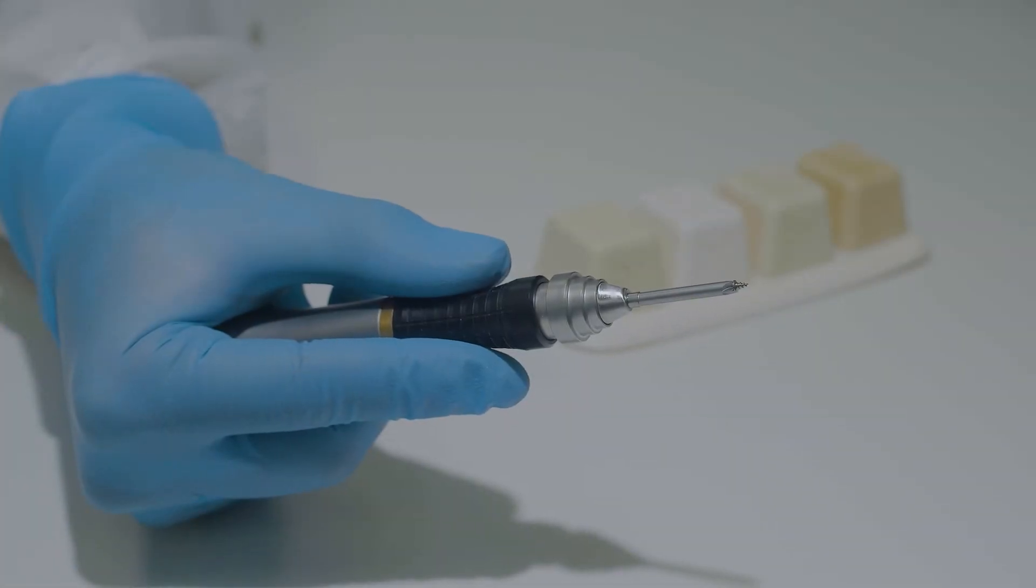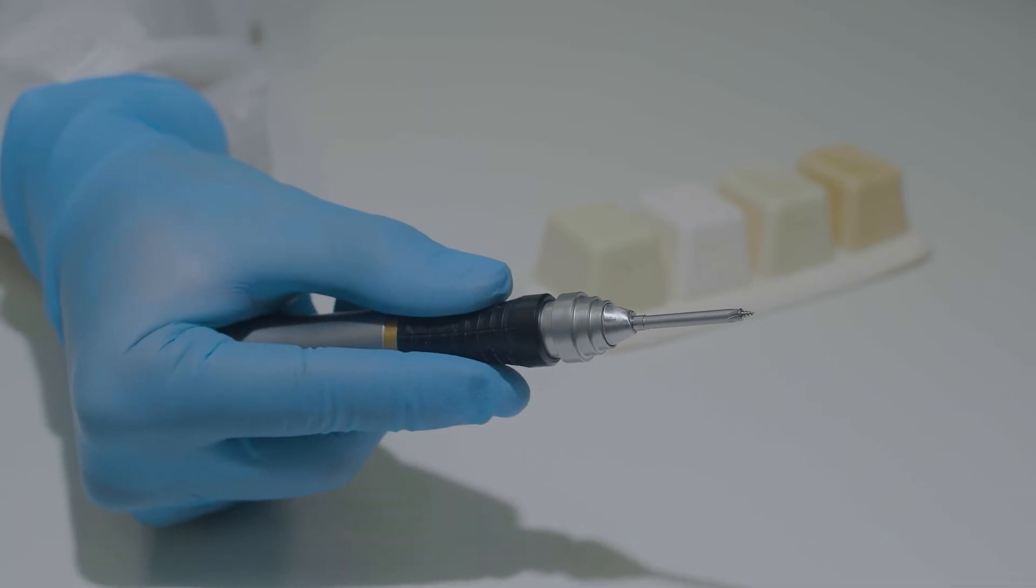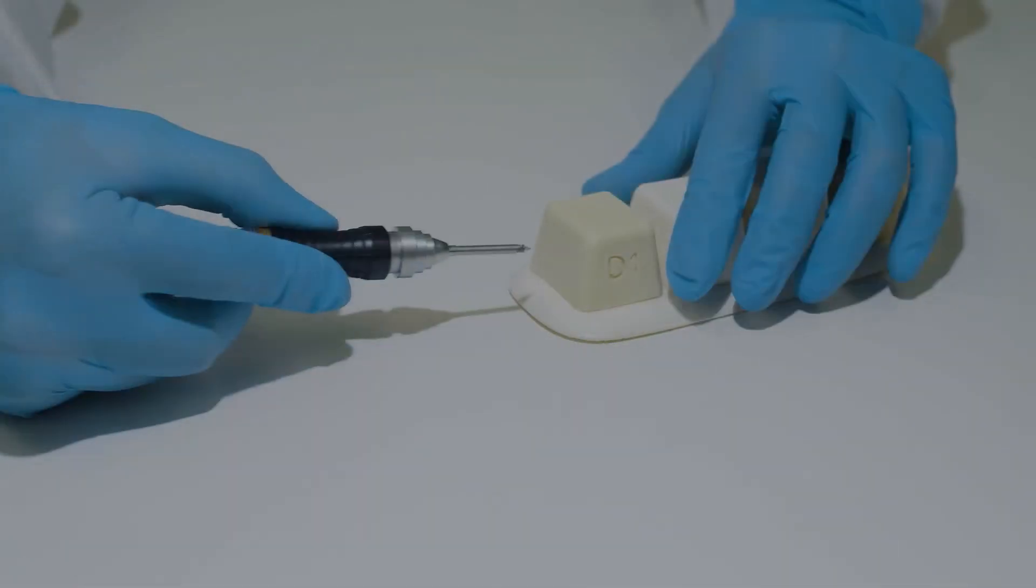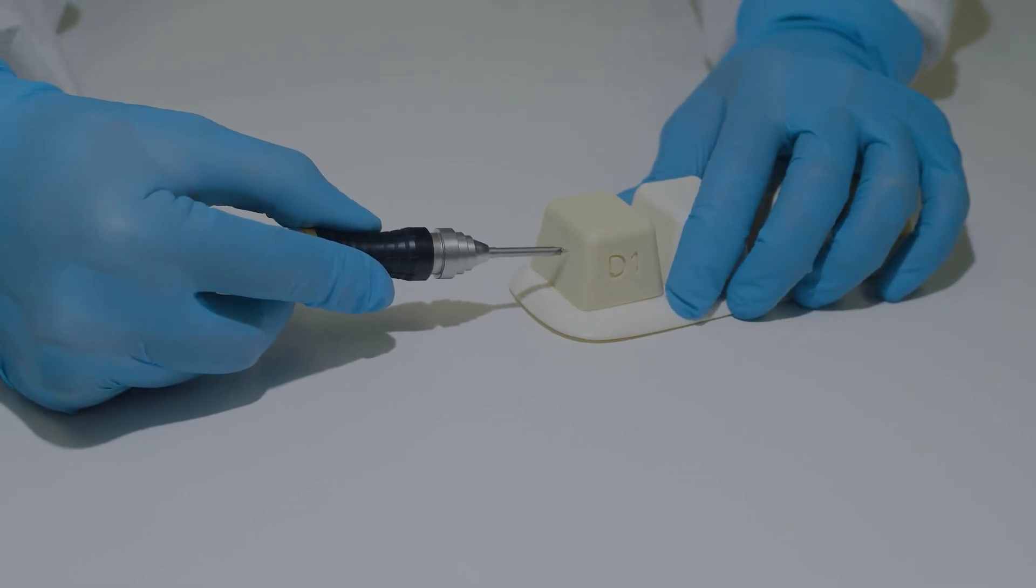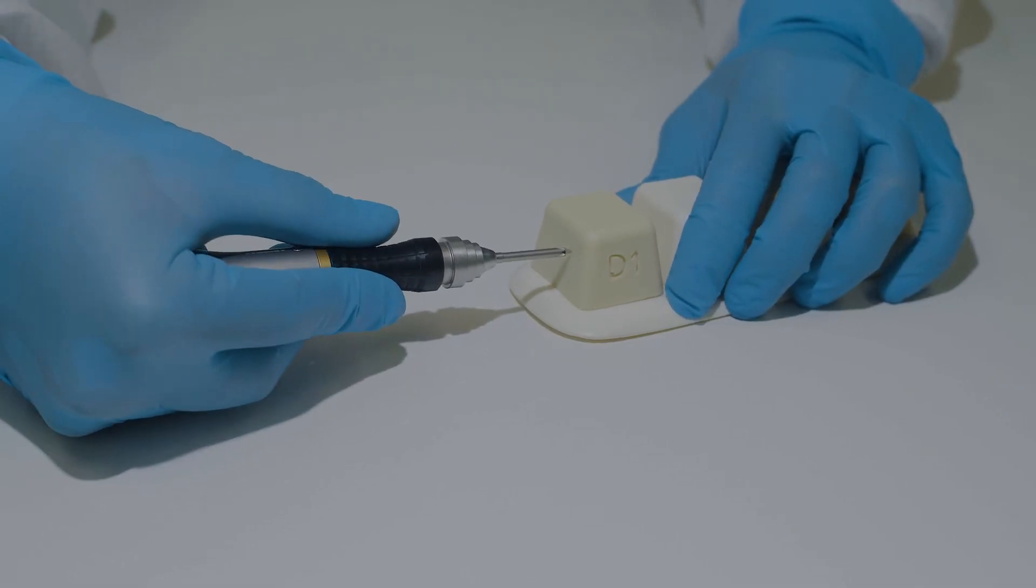Now, I'm going to show you how to engage the screw into bone. Place your thumb and index finger on the black portion of the driver handle. Apply pressure with the palm of your hand and begin turning the black piece clockwise.